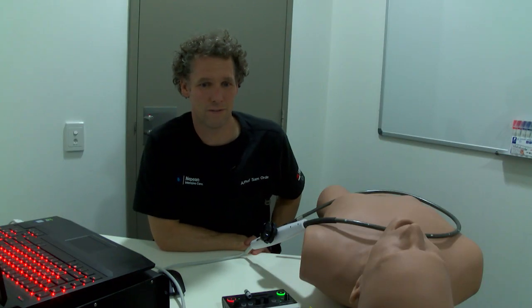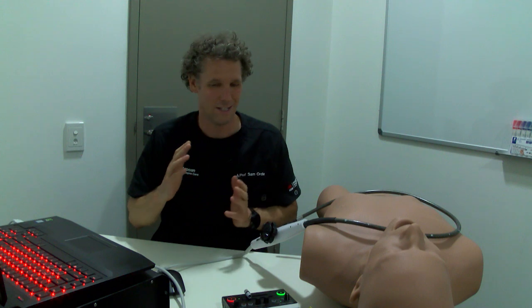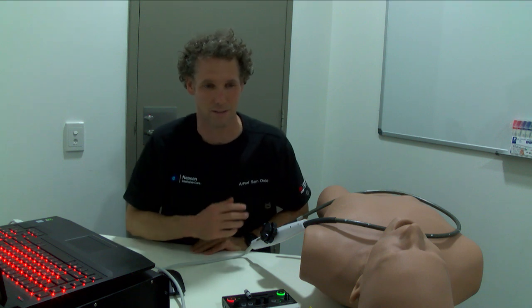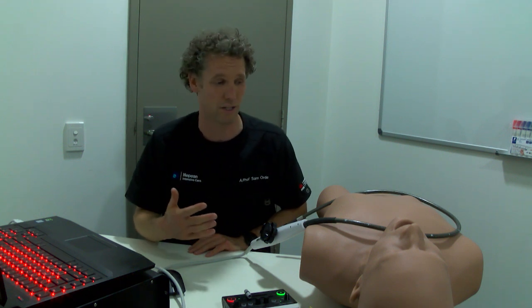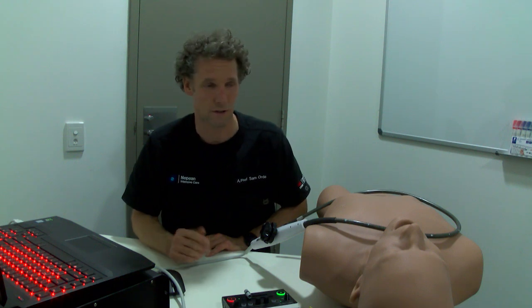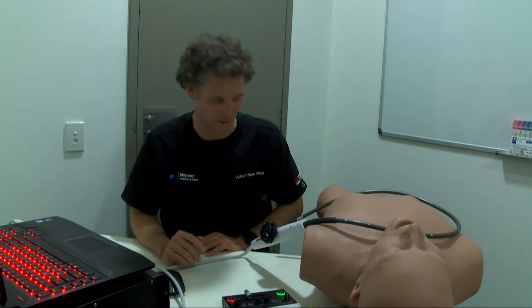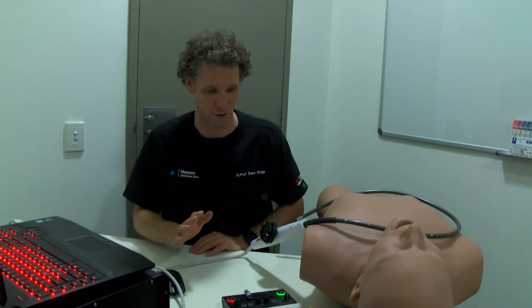Hi, thank you everyone for joining us for advanced echo education and critical care today. We're going to go through transesophageal echo - it's not a comprehensive lecture by any means. I've just got 45 minutes and a few cases to present. I'm going to try and show you tips and tricks. There are lots of things out there about how to perform a TOE; everyone does it slightly differently. I'll show you how I do it, and please interrupt me at any stage if you've got a question.